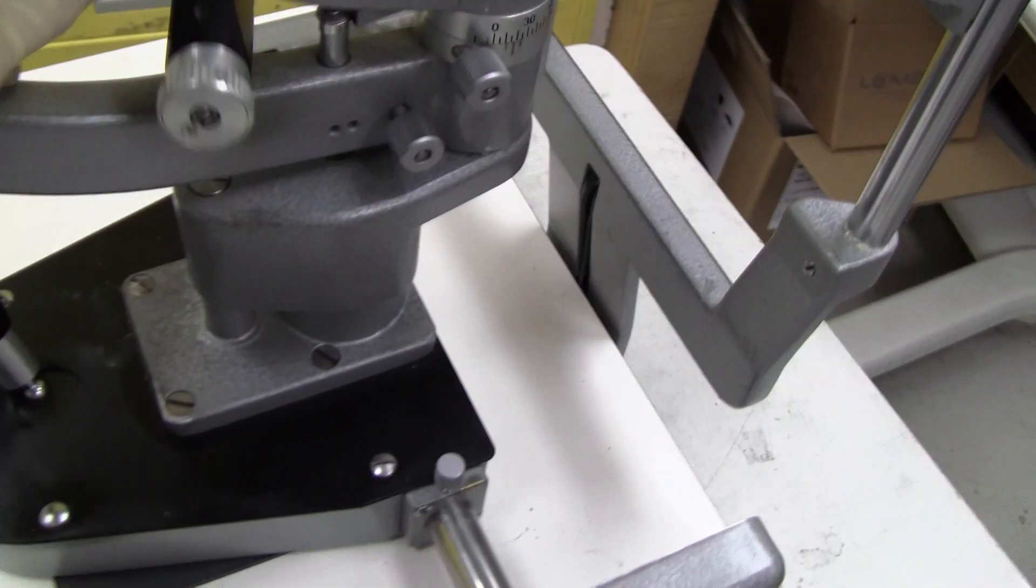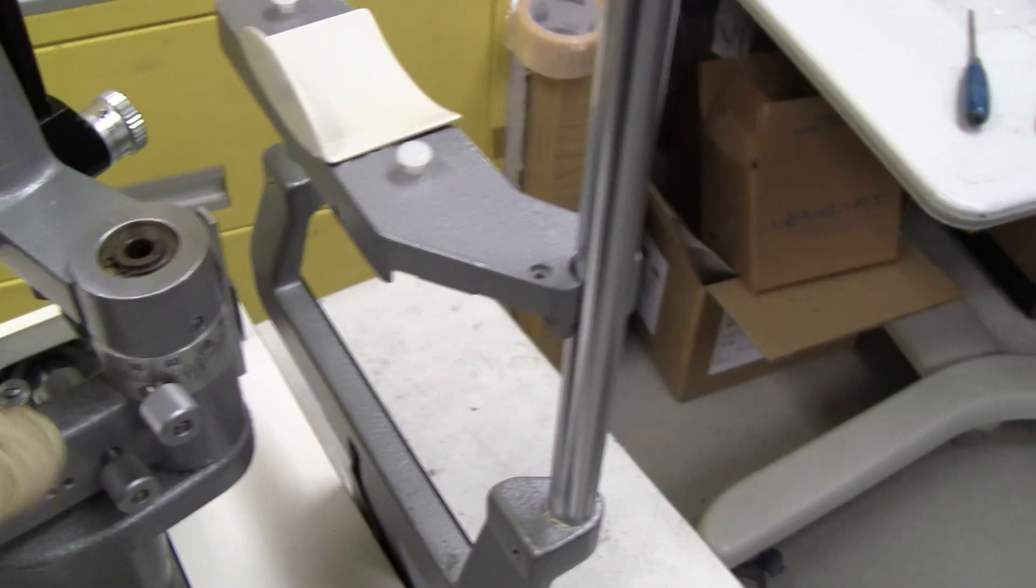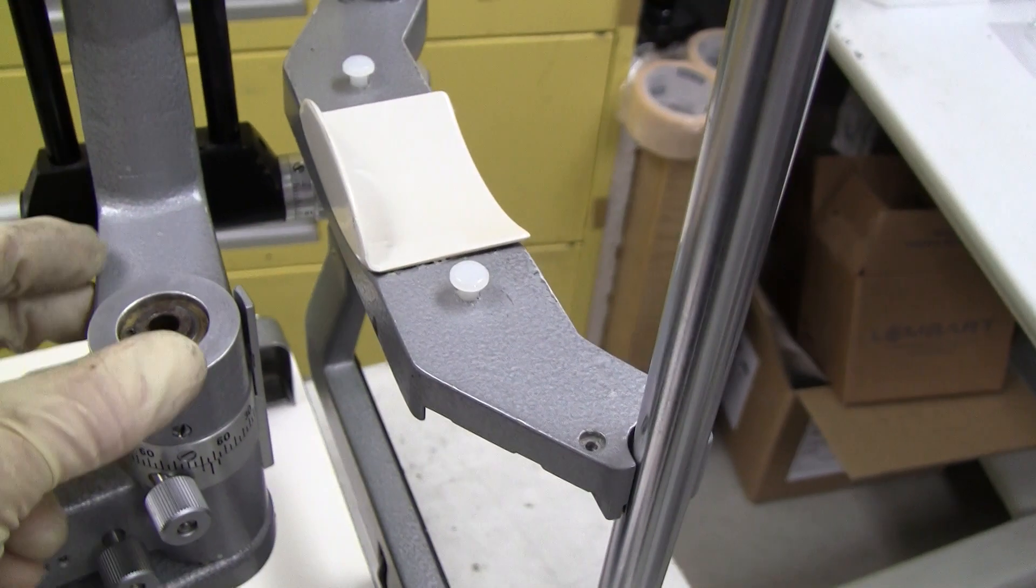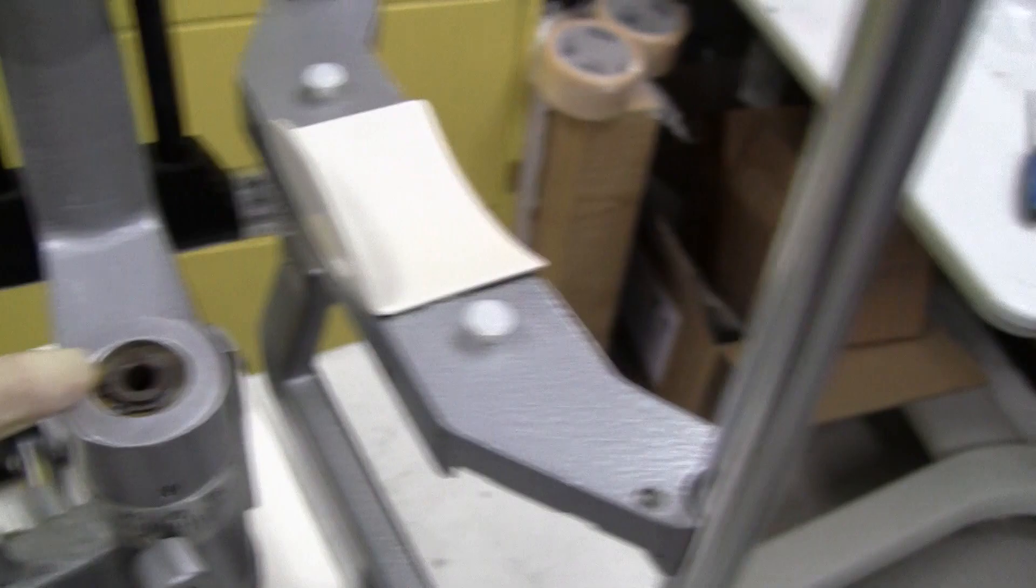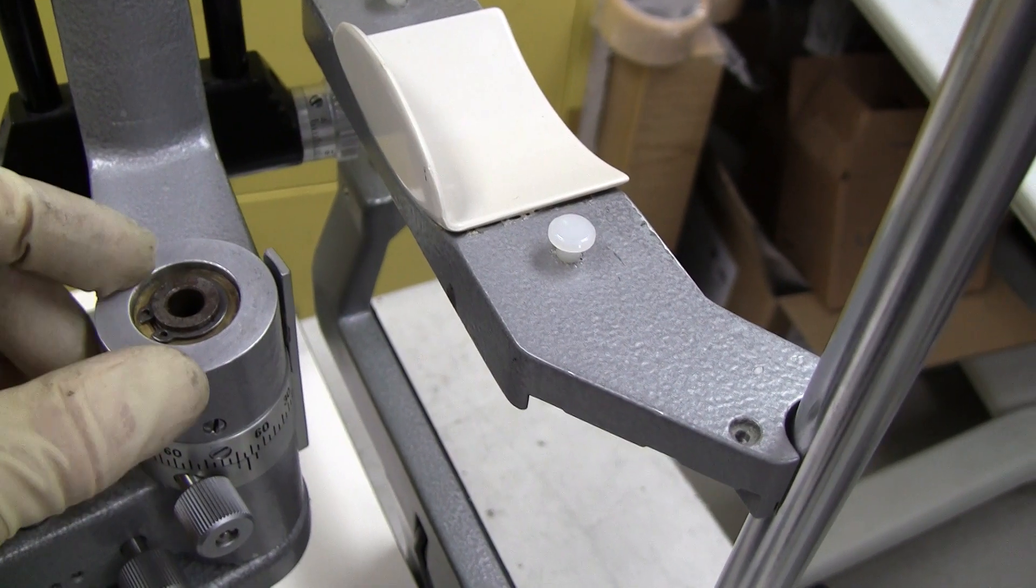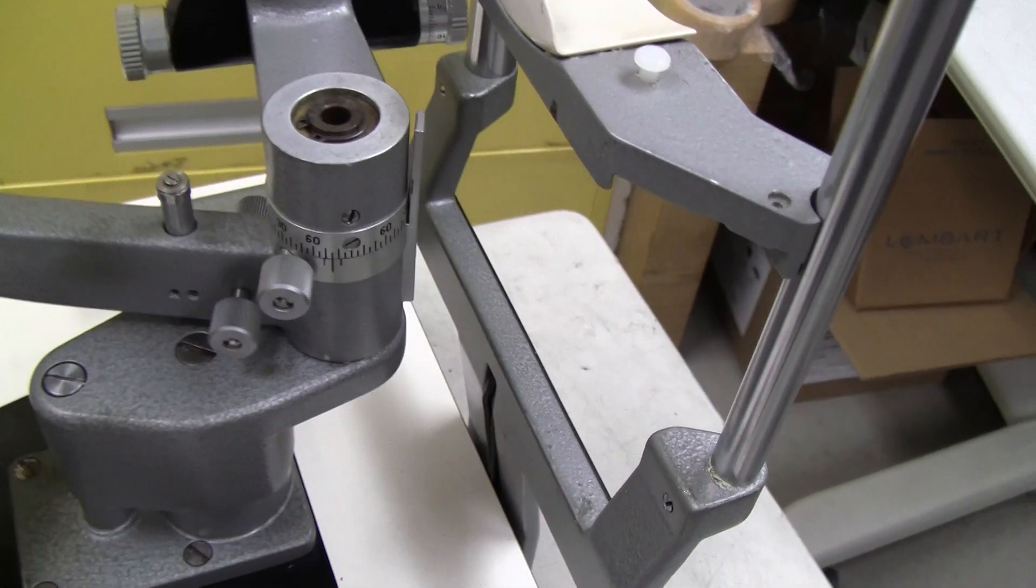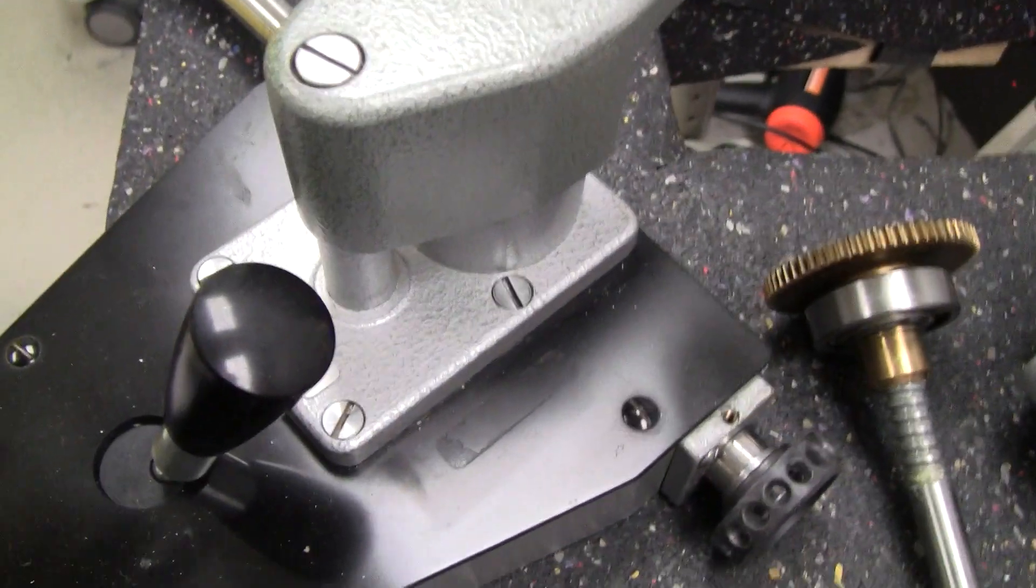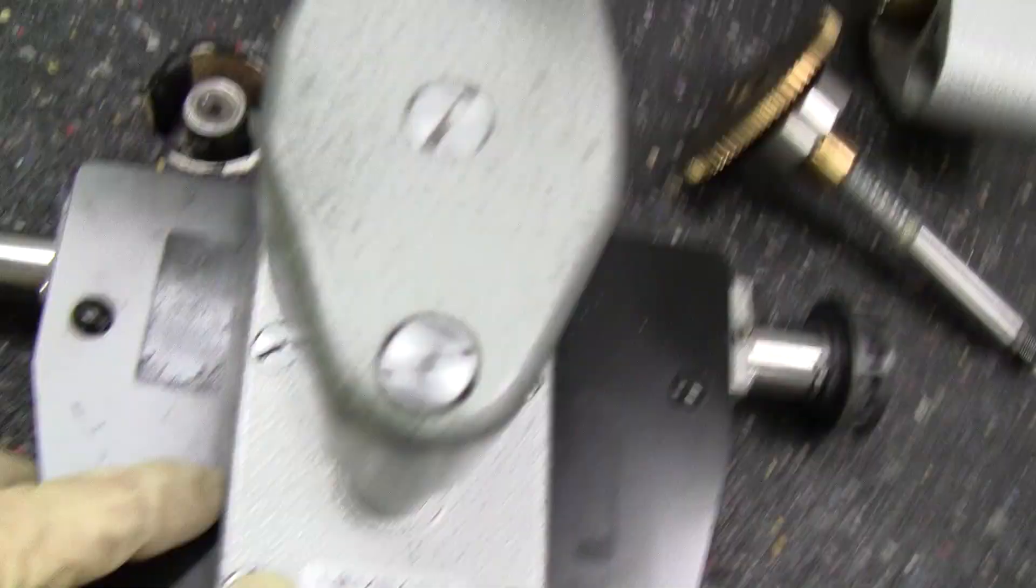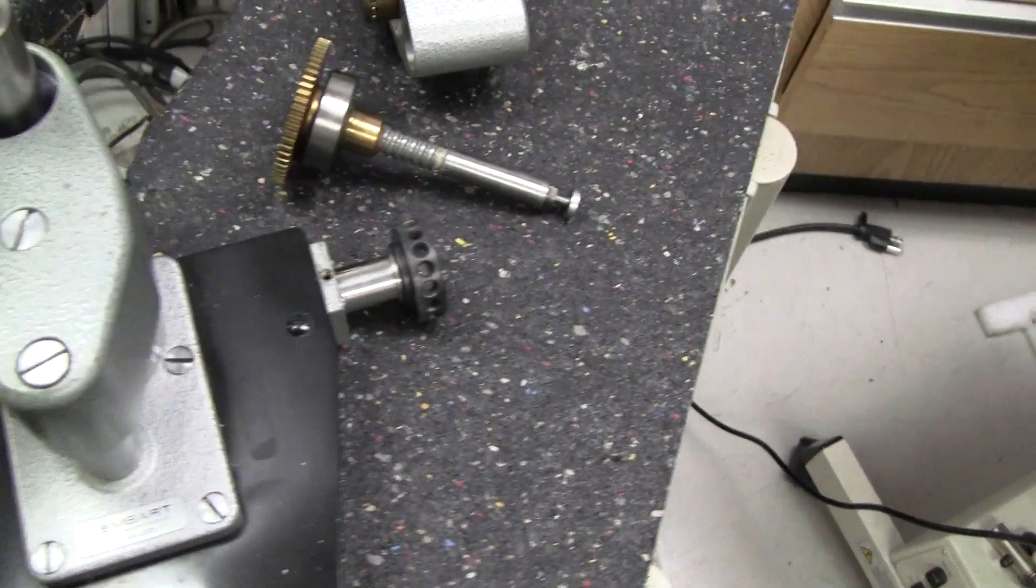The way to take the spindle out, first you've got to take your spring out by removing this screw. You can take your tower off, remove this snap ring, and you can pull the bushing off and the microscope arm off, and then it leaves you with just the base. Take off these four screws right here to get the spindle assembly out.